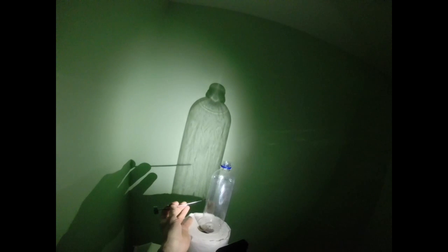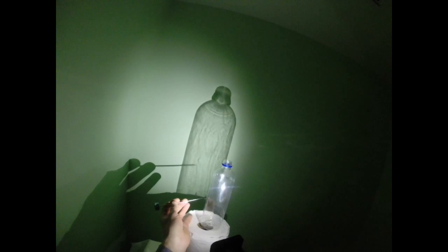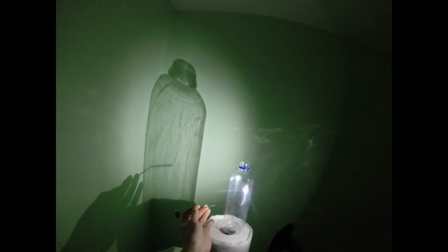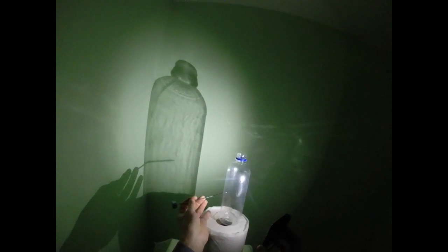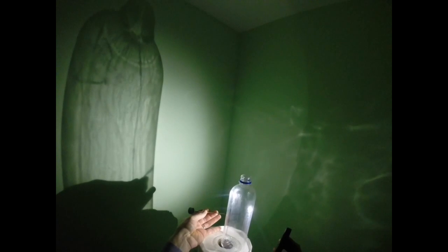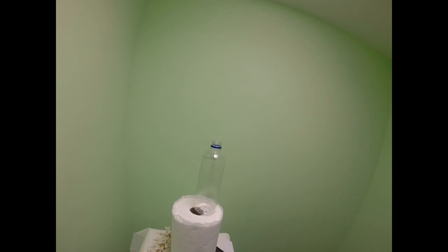With situation number three, when my needle bypasses the midline and I rotate the light source towards the needle hub — not the needle tip — I can see my needle appears deep both in the lateral and oblique views. But is it a true contralateral oblique view? The answer is no. To get a true contralateral oblique view, I have to go to the opposite side, and in that case I can see my needle tip touching the edge of the shadow. To conclude, the light and shadow model can simulate fluoroscopy and can be used to describe different fluoroscopy views.